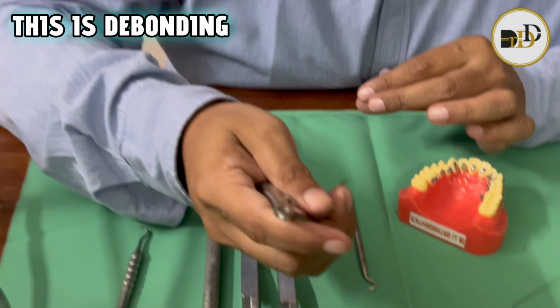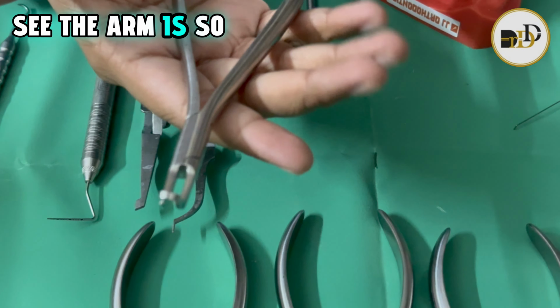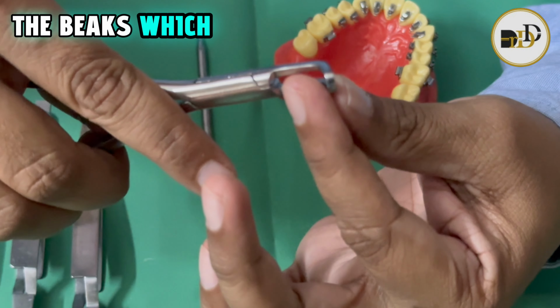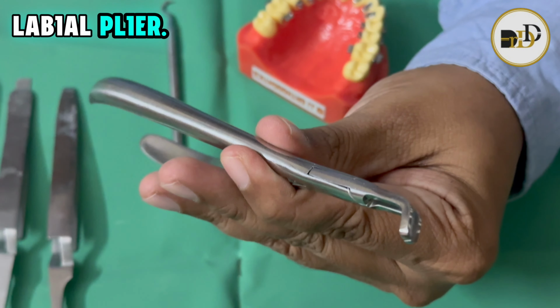This is the debonding plier. Here also, if you see, the arm is so much longer and we have beaks which are so much thinner compared to the labial plier.